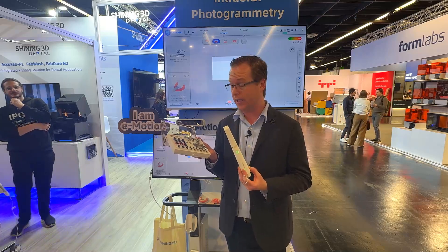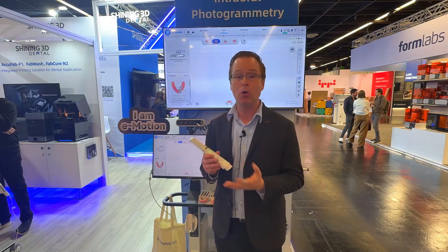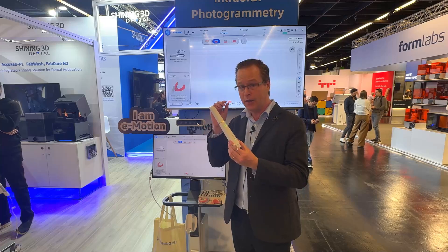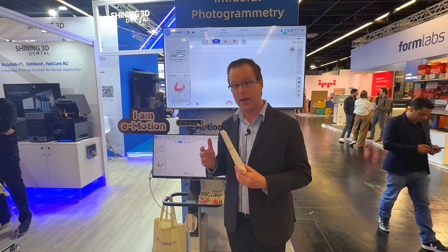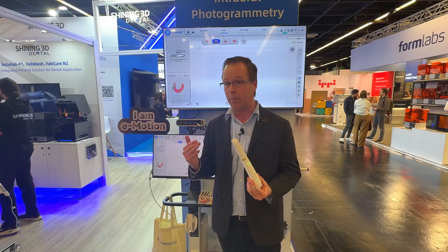What I'm here today to talk about is the Emotion setup in front of us, which is a really nice setup combining the Shining 3D Elite wireless scanner plus the MediMotion scan device to bring together a really incredible package on a cart that brings everything to me in a clinical practice.